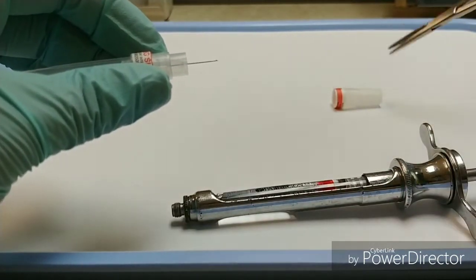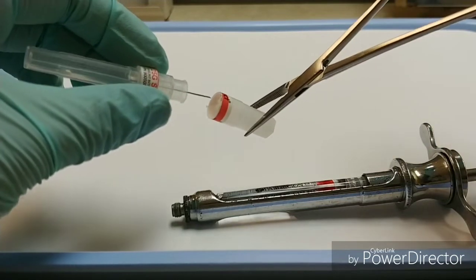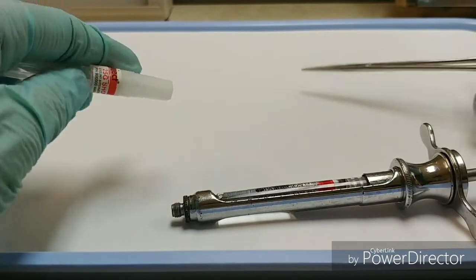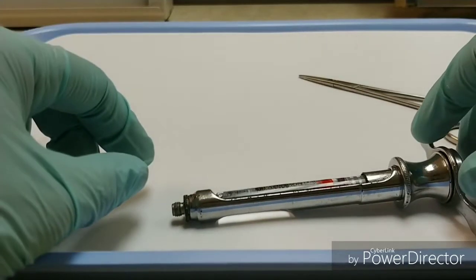Recapping is not necessary if you could put it straight into the sharps, but if you don't have sharps disposal at your operatory, you can use a safe recapping technique to recap that cartridge penetrating end.